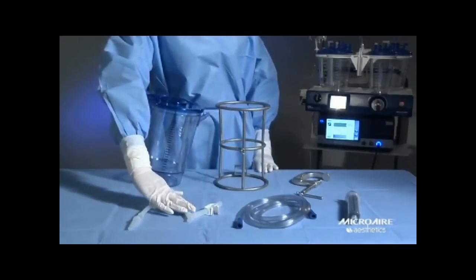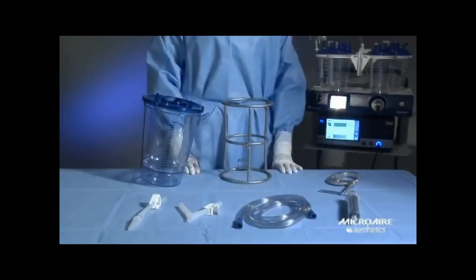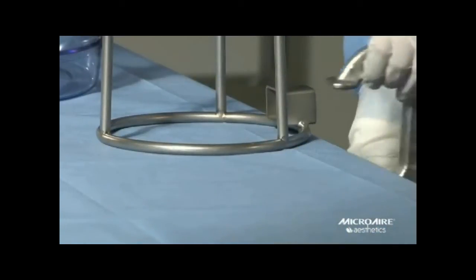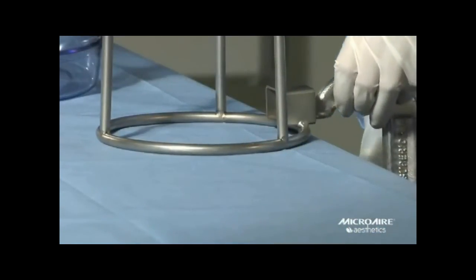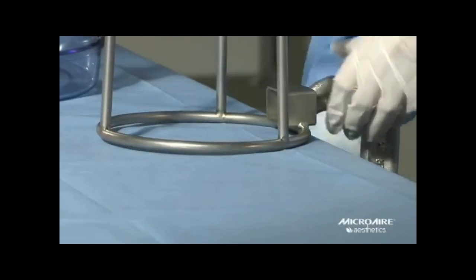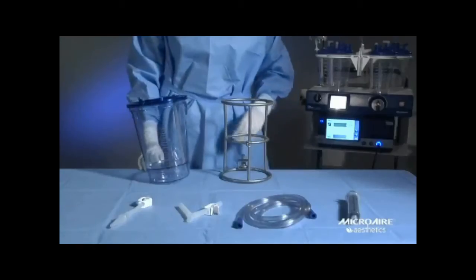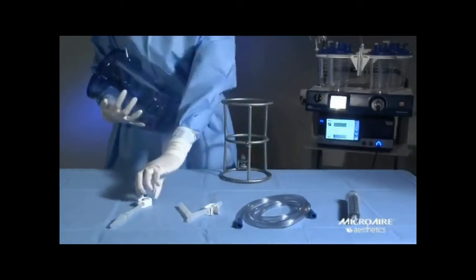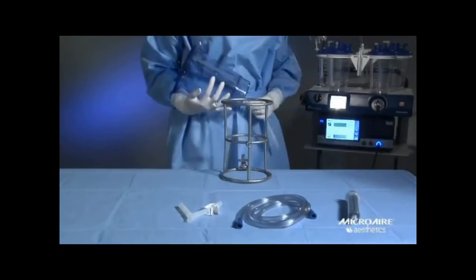After sterilizing, attach the stand to your table or Mayo stand, whichever you prefer, using the table clamp. Remove the canister from the sterile pouch after carefully reading the instruction manual.